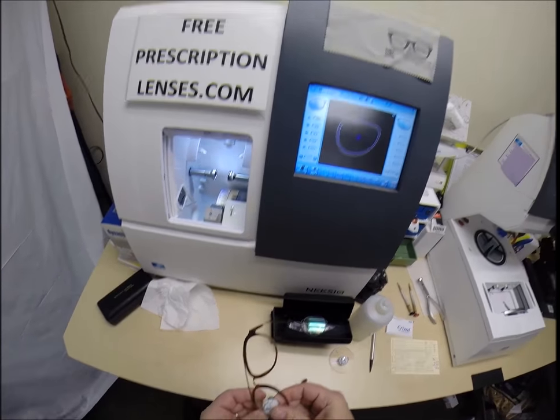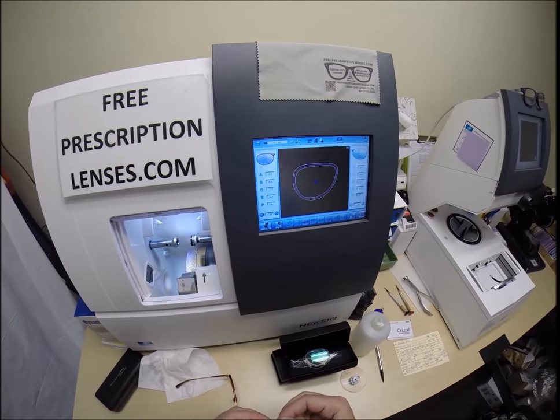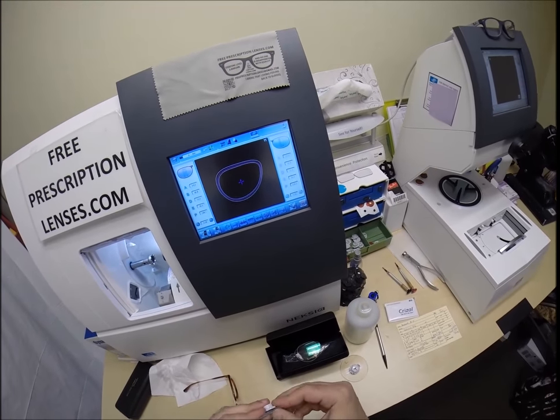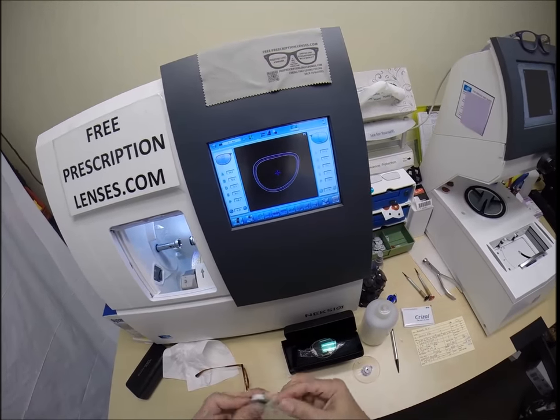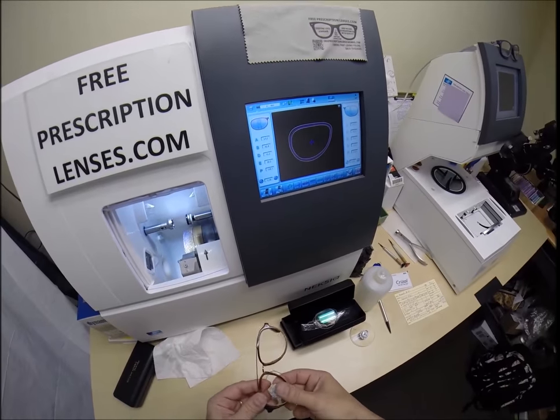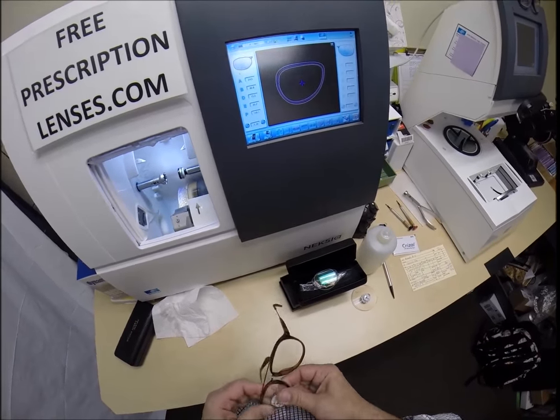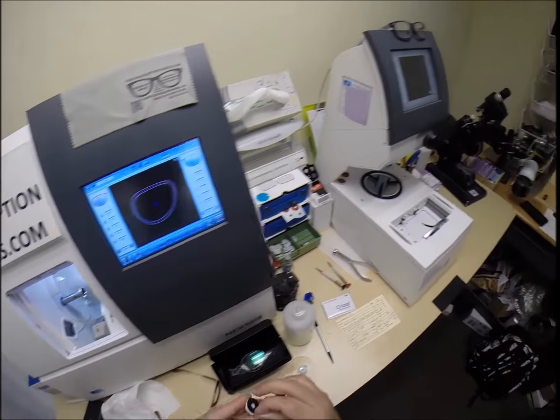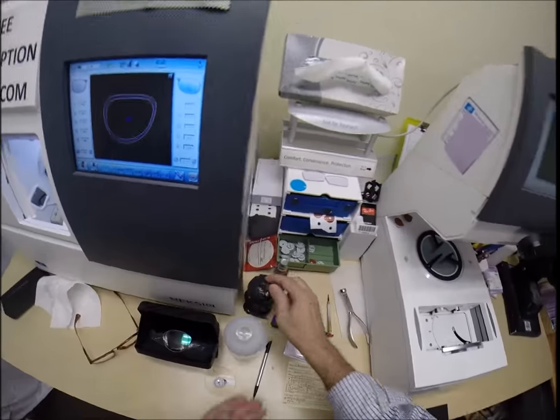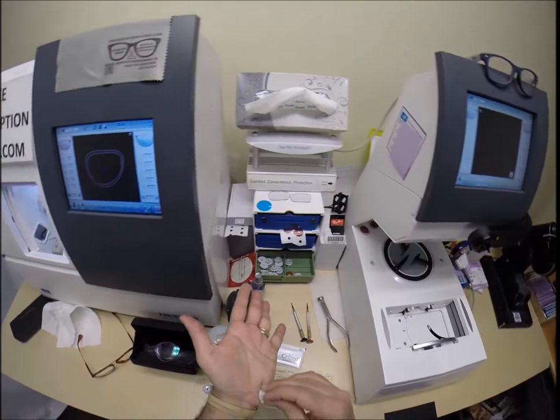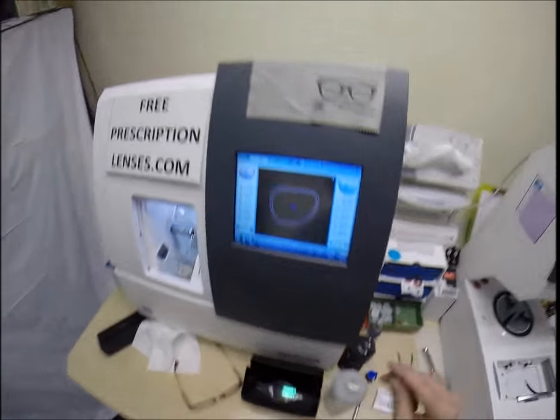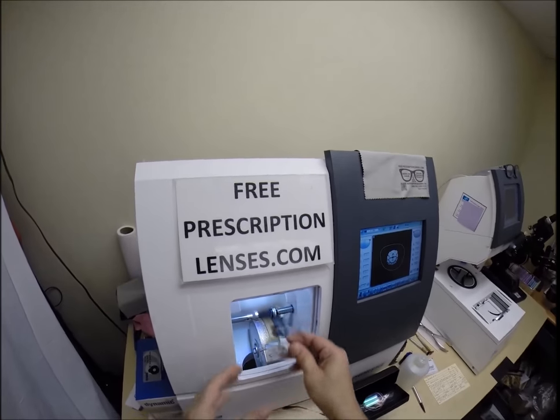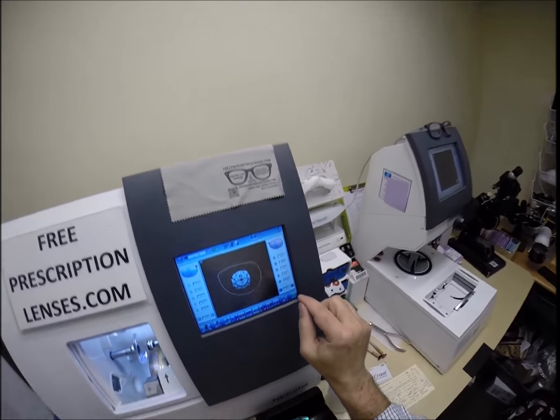So, we tuck it into the outside corner. There's a little shwarf on the front. Clean that off. Now it snaps in there. Look, that's good because the block came off. Let me put the little sticker there. Dry that off on my palm. Best way to clean anything and dry it, put it on your hand. Flip that over to L. Take the old L, press that on there snug, and hit start.